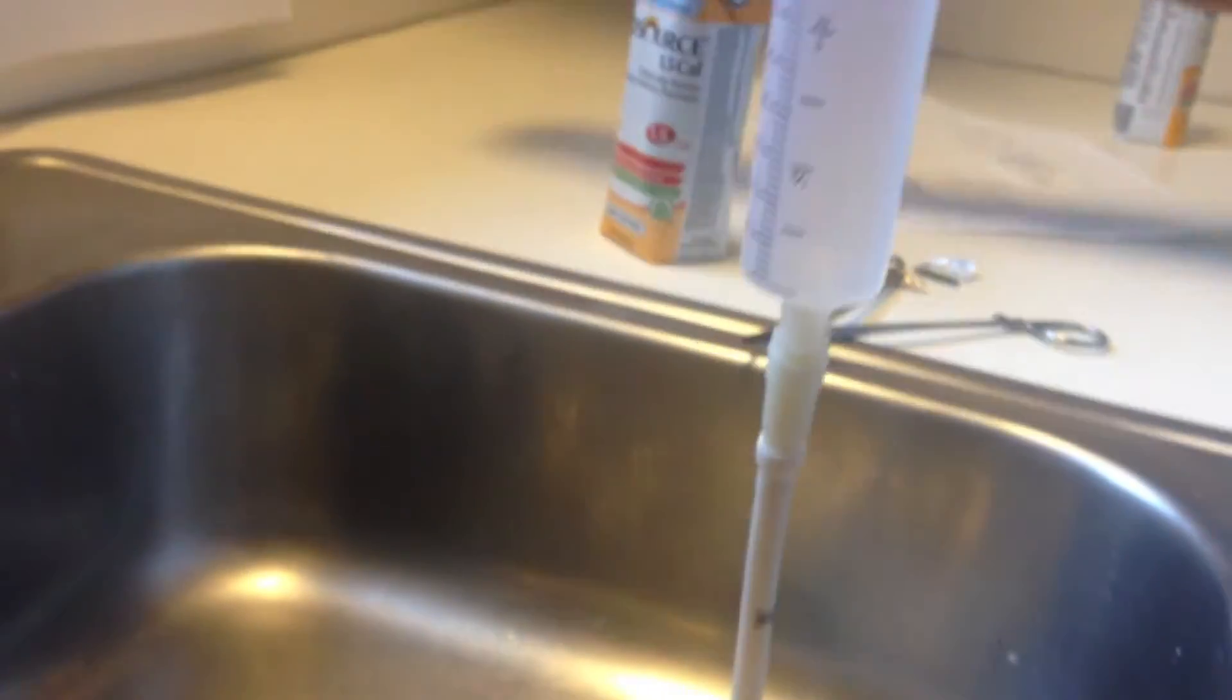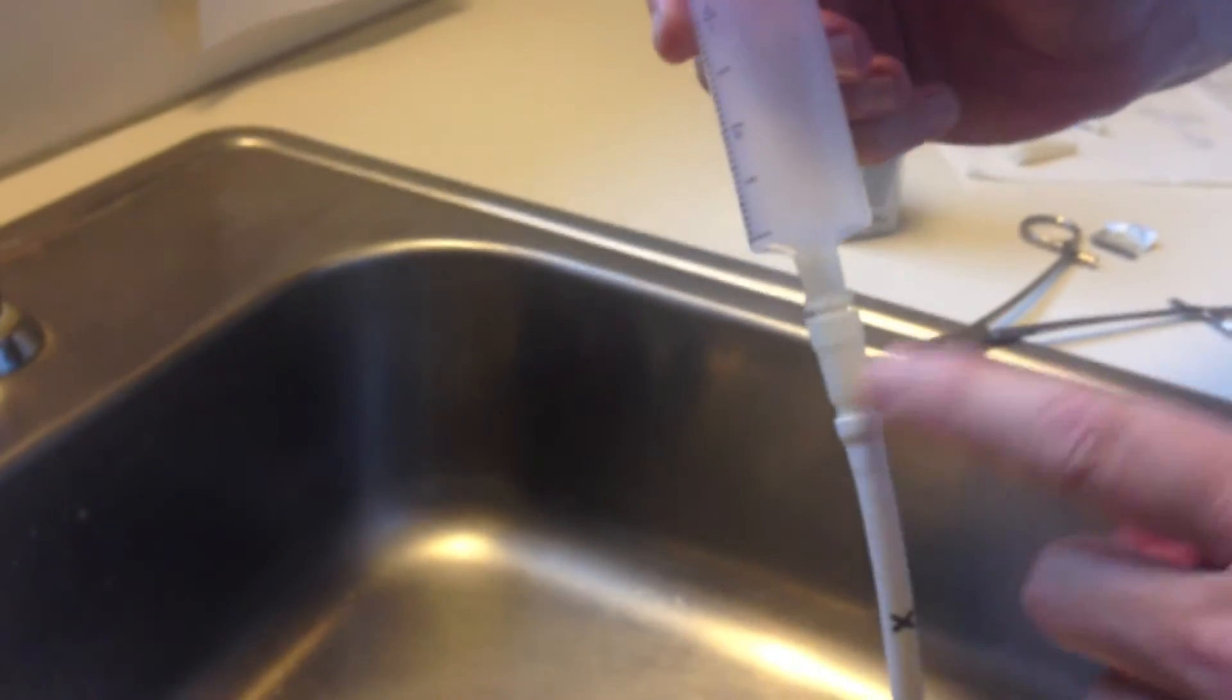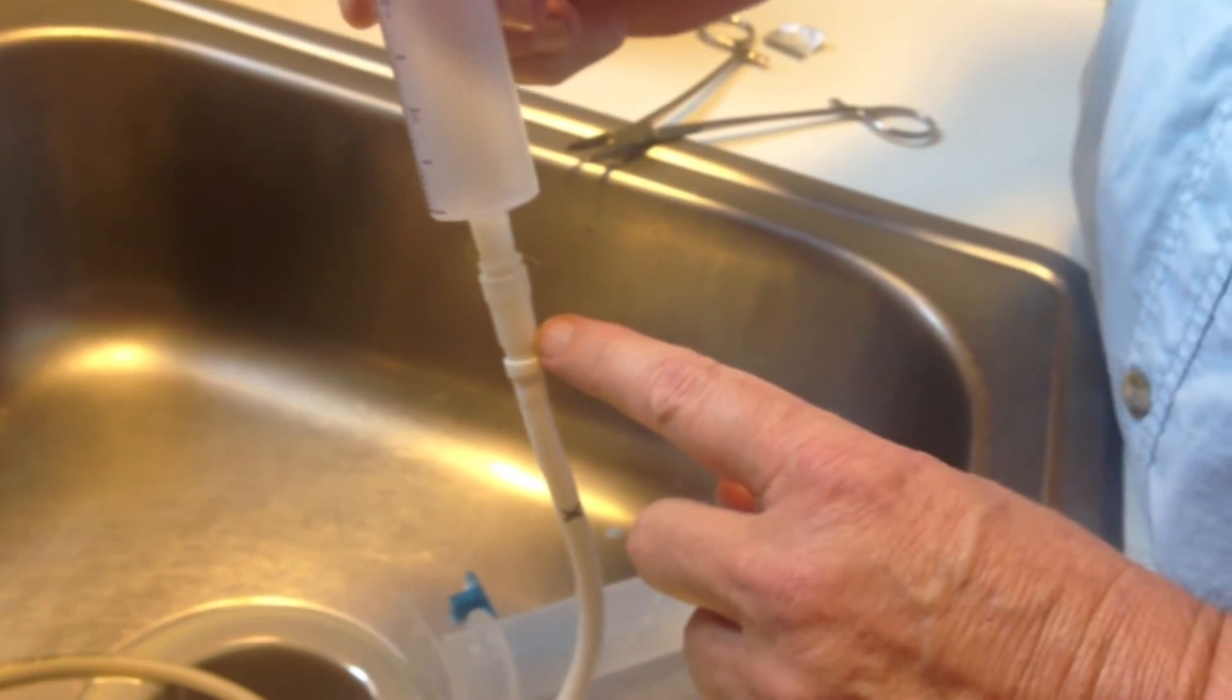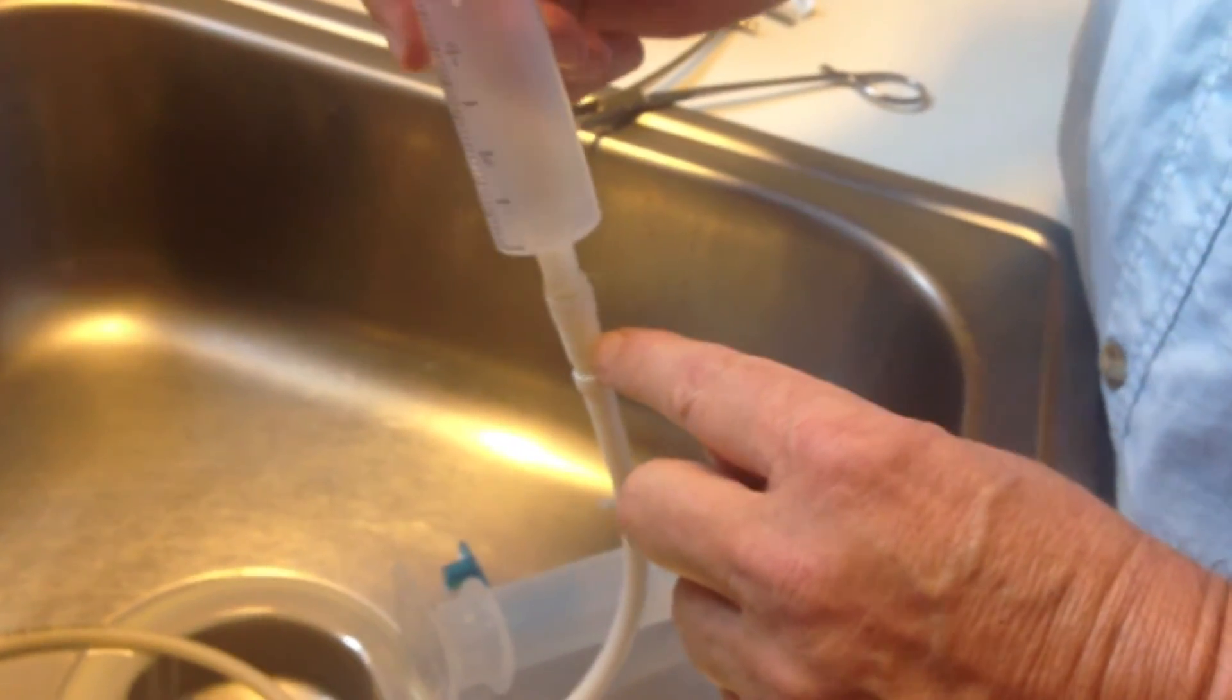It took approximately 30 seconds in order for this to completely drain using the ENFit connector. As you can see, there's a substantial difference whether you use the 20 French system or the 24 French system between the ENFit connector and the standard connectors that are used on existing PEG tubes. Thank you.